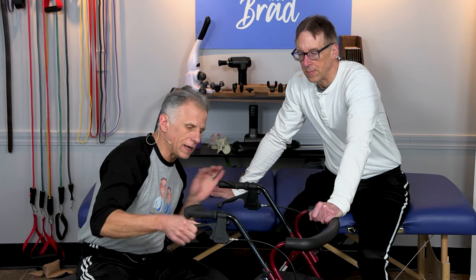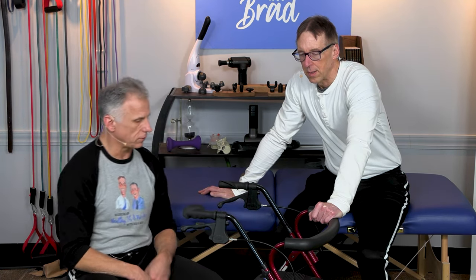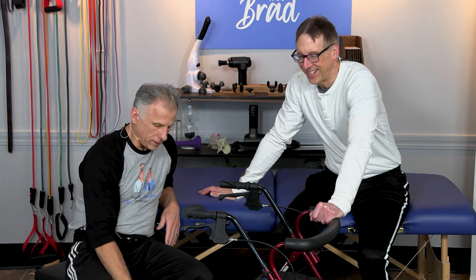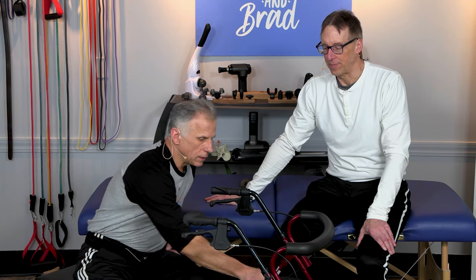Even this one is a little too tight now — I'll have to readjust it, but it's not important for this video. Good luck working on this device. I want to make sure you don't say bad words as a result of my poor explanation — but it's handy. A blessing and a curse, like Monk. All right, thanks.